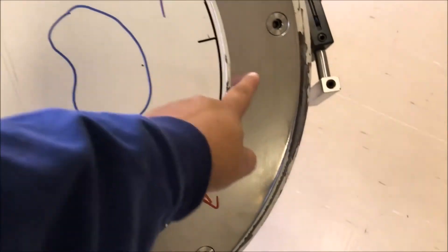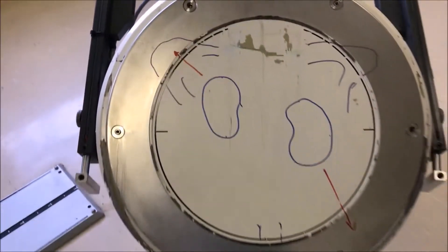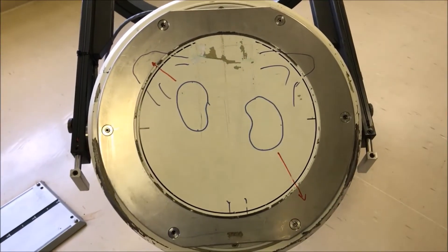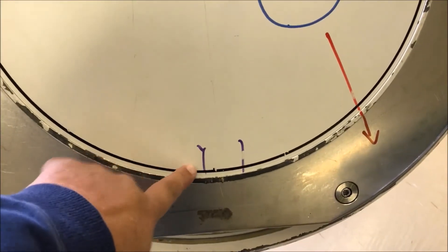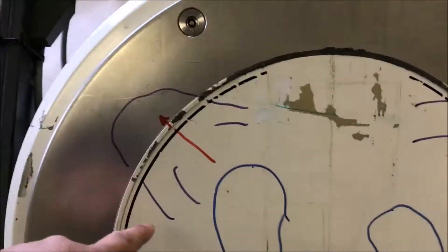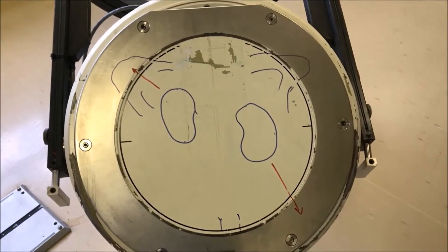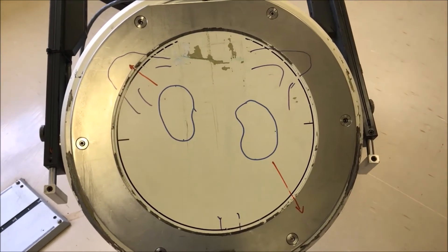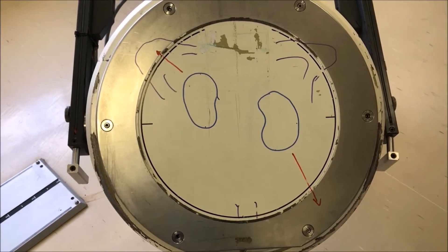If the kidneys are slightly laterally positioned, or you might have a higher or lower kidney like a pelvic kidney, it would be very easy for the field of view to cut in so part of that kidney falls outside the field of view. It's also important that when we're doing abdominal imaging — for example a GI blood loss study, shown here in purple as the rectum — you could very easily end up with the hepatic flexure on one side and the splenic flexure on the other falling outside the field of view. So it wasn't ideal and positioning had to be a lot better.